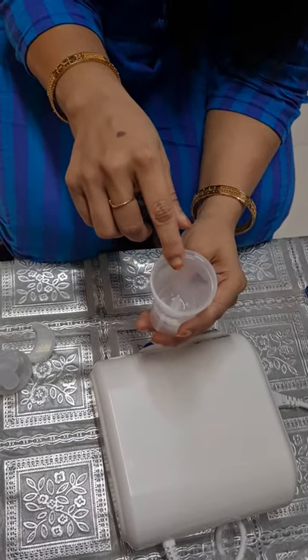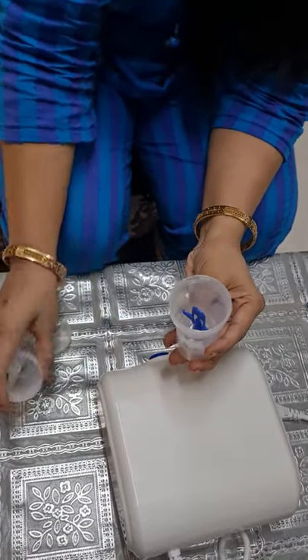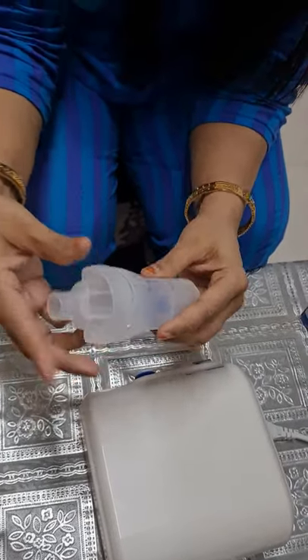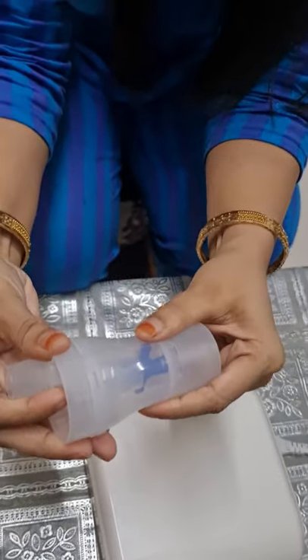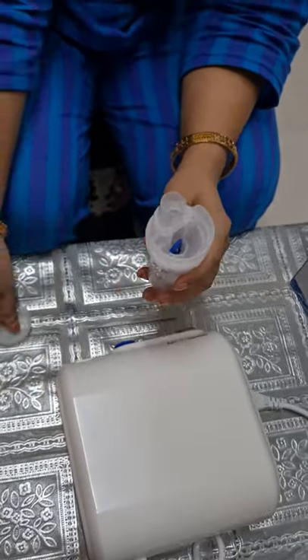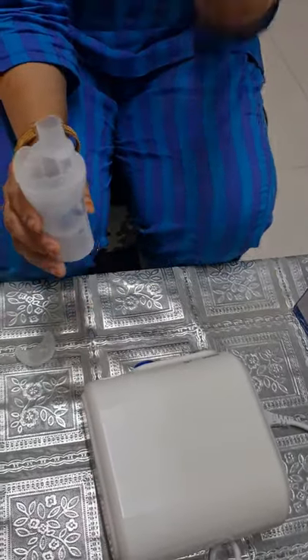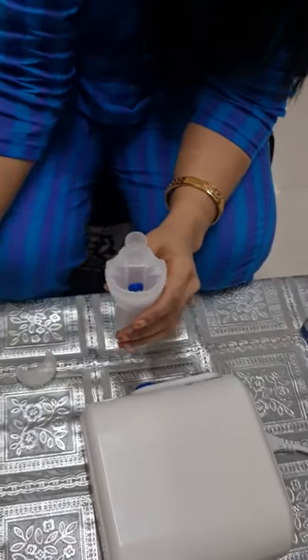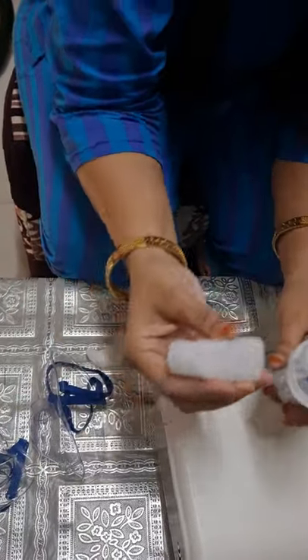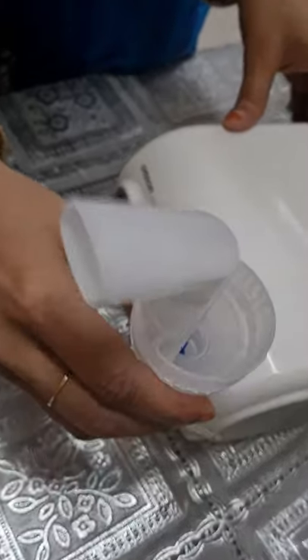Put the medicine in the medication tank, then reattach the vaporizer head to the medication tank. Then put the inhalation top back inside the medication tank and fix it. There is a lock and unlock system — make sure it is locked properly. For this you need to rotate the inhalation cap clockwise and then align the medication tank until they are in the correct position. Then attach the cap and mask. If you want to use the mouthpiece, you can insert it here.